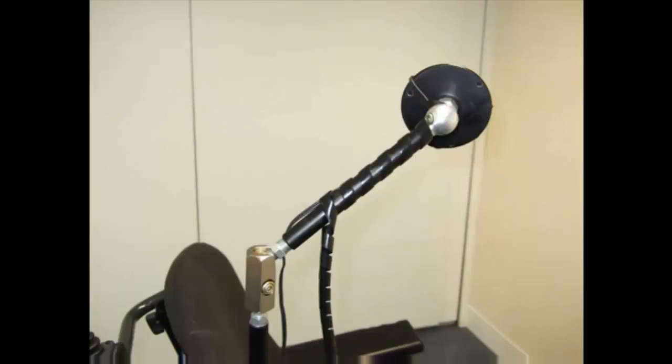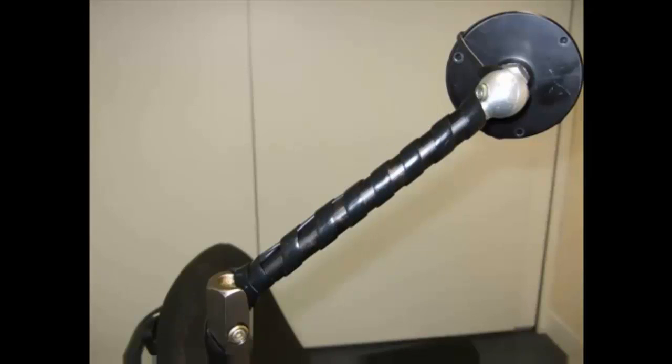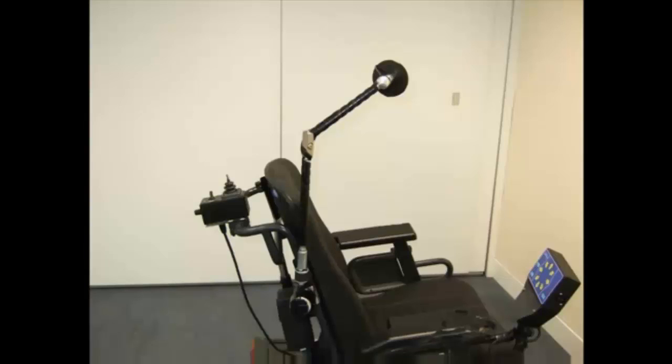If switches are used, cable wrap is a useful product to tie the cables neatly against the pole. Finally, test any quick release options or swing-away options installed as part of the mounting system.